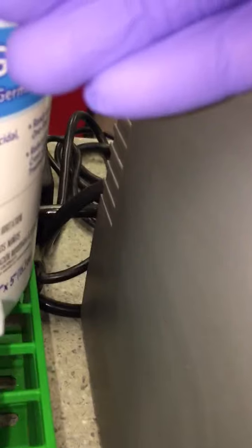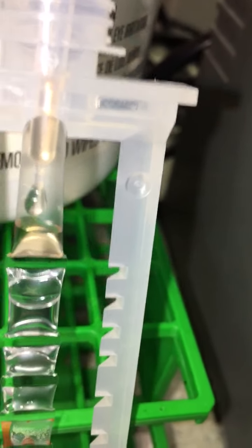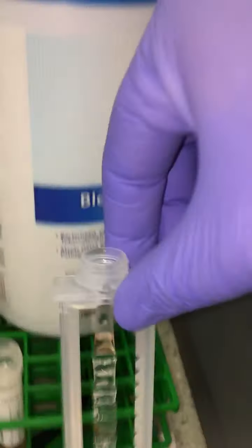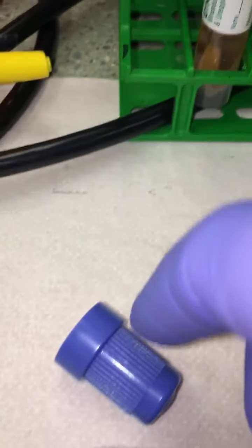Now at this point, I'm going to introduce my sample to my test cartridge, which is in this top well here, is where we want to add it. You want to swipe across there so you don't create any air bubbles. We know that air bubbles in testing can be a bad thing in any department. You can see there I have a pretty good application of my sample. You want to just tap down on that a little bit to allow anything that remains at the top of the cupule to be brought down.